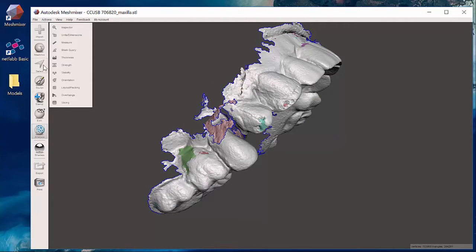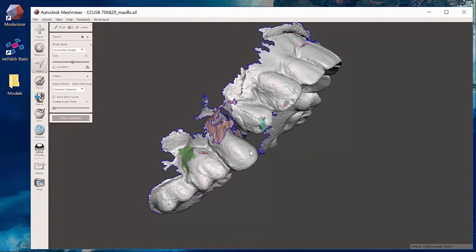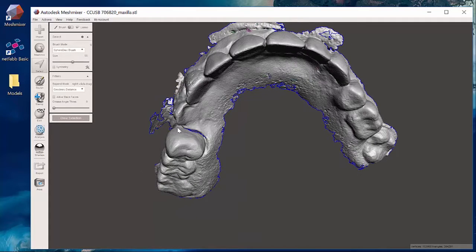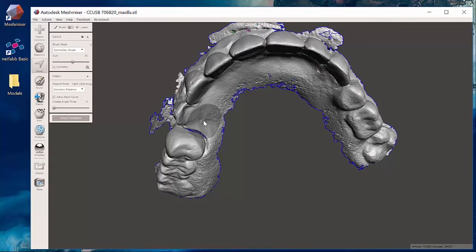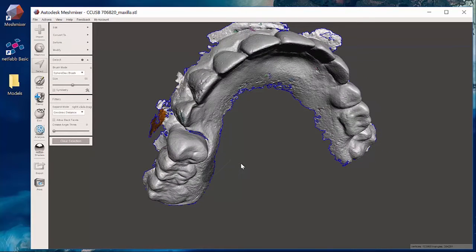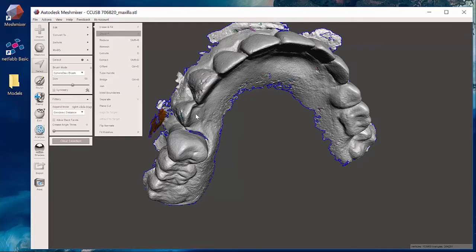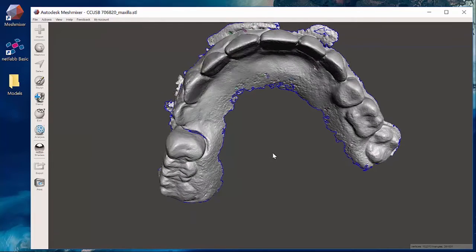So I draw your attention to the select feature and I could always use this little circular object that pops up in front of me and just click that. If you do that you can then go up to edit and discard to cut it away.